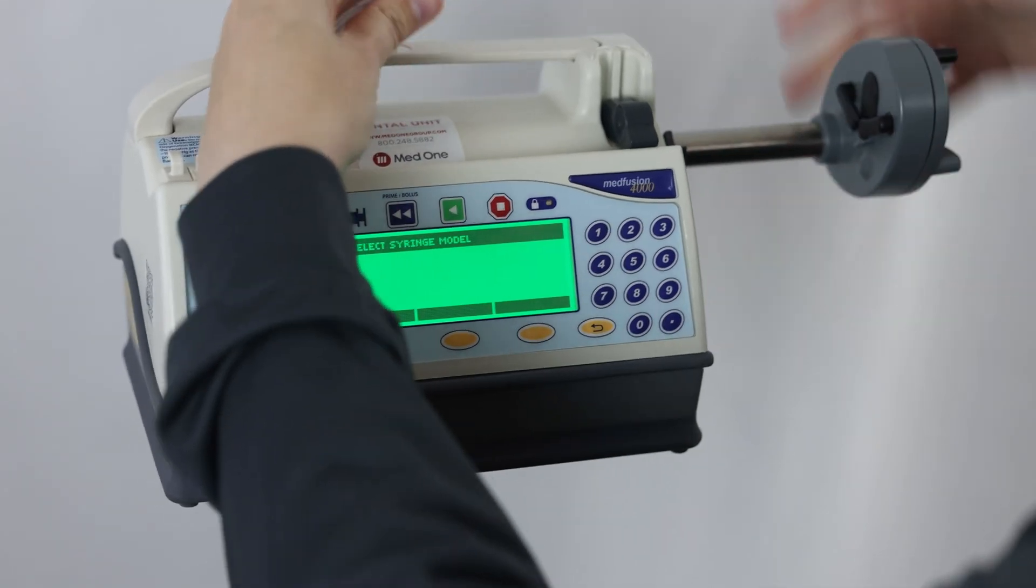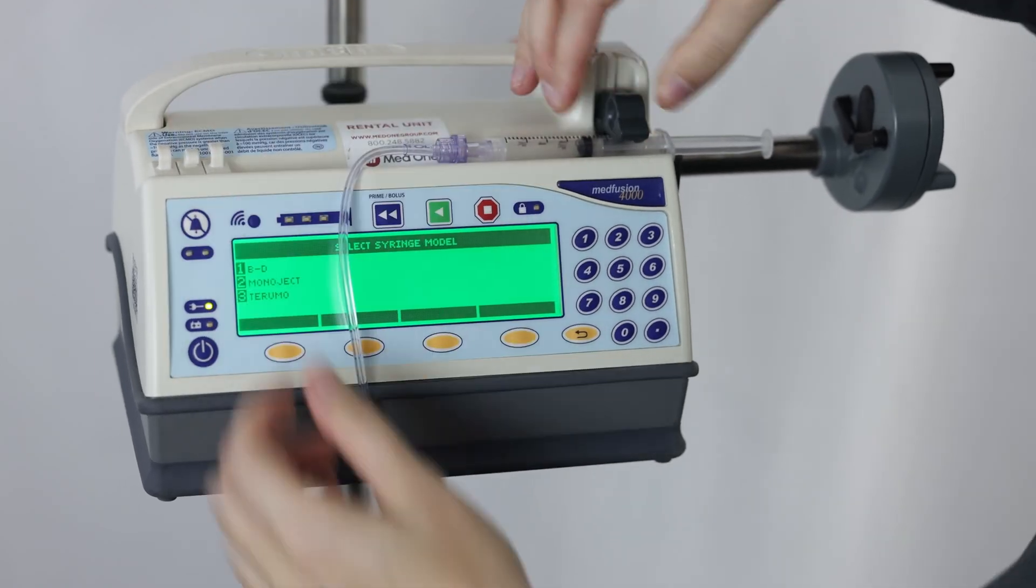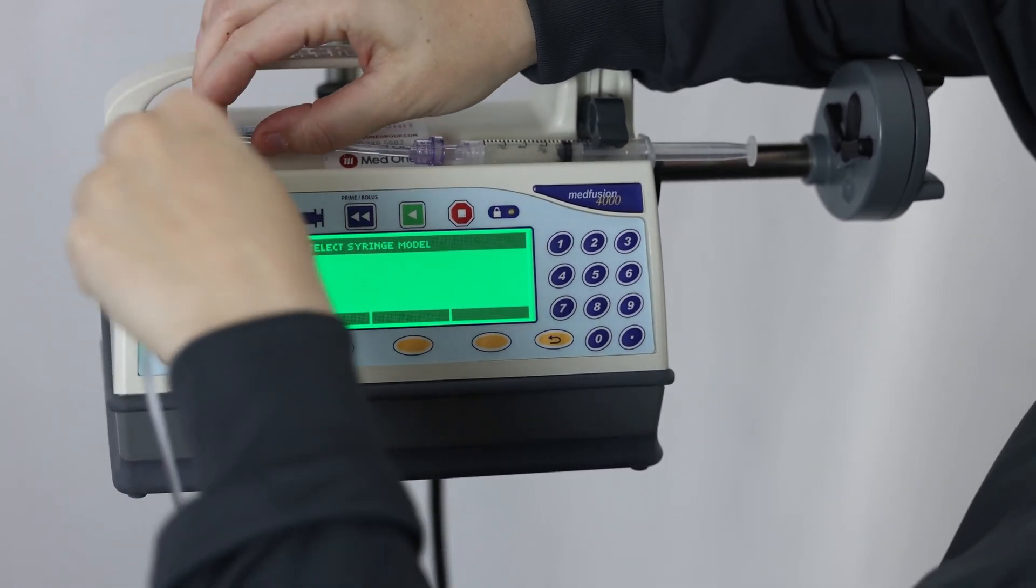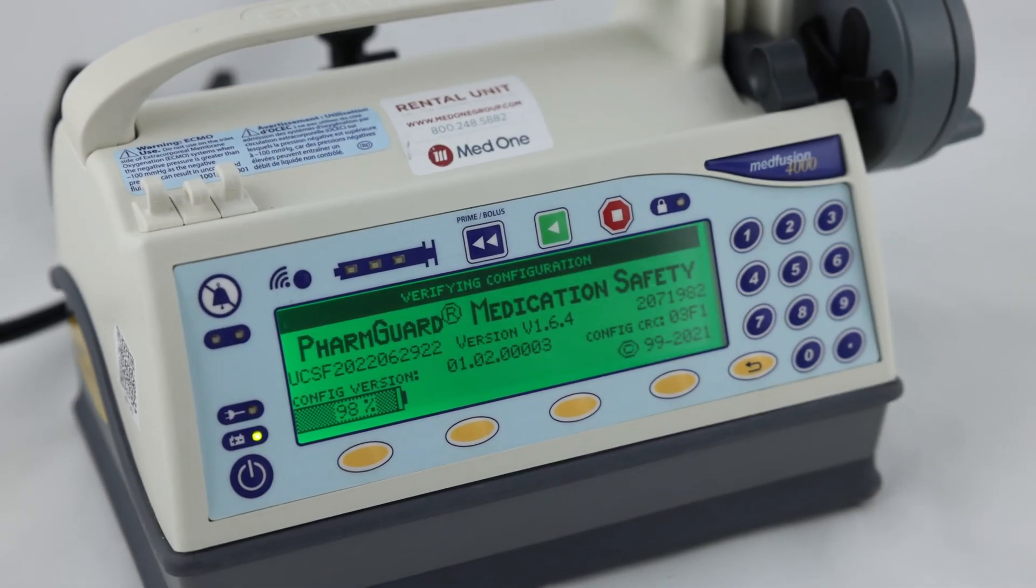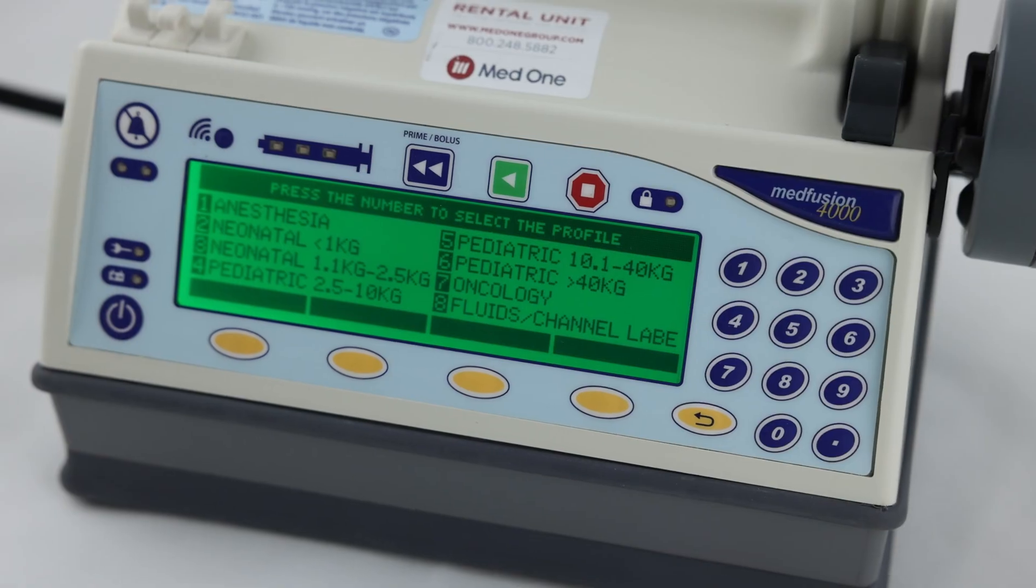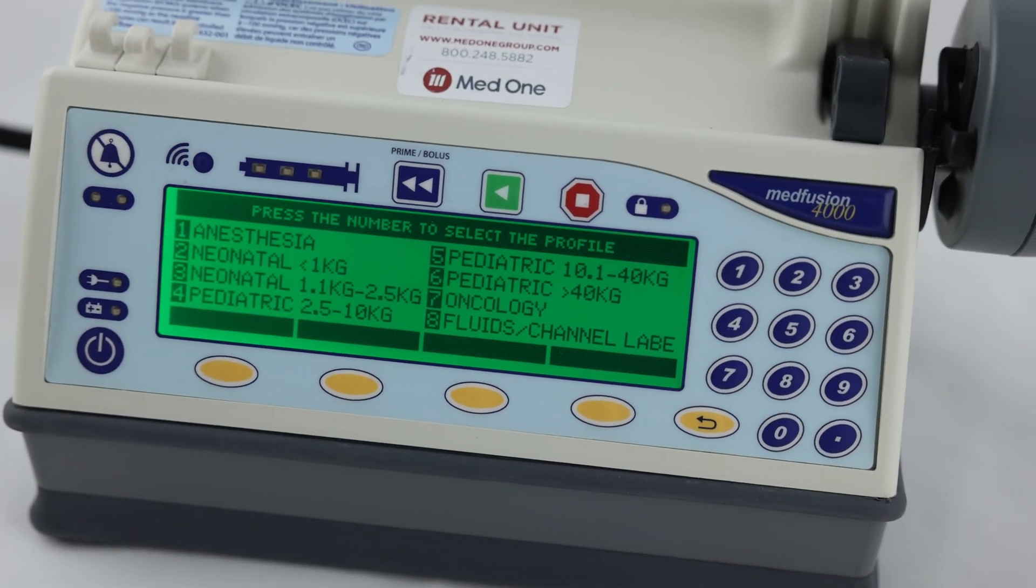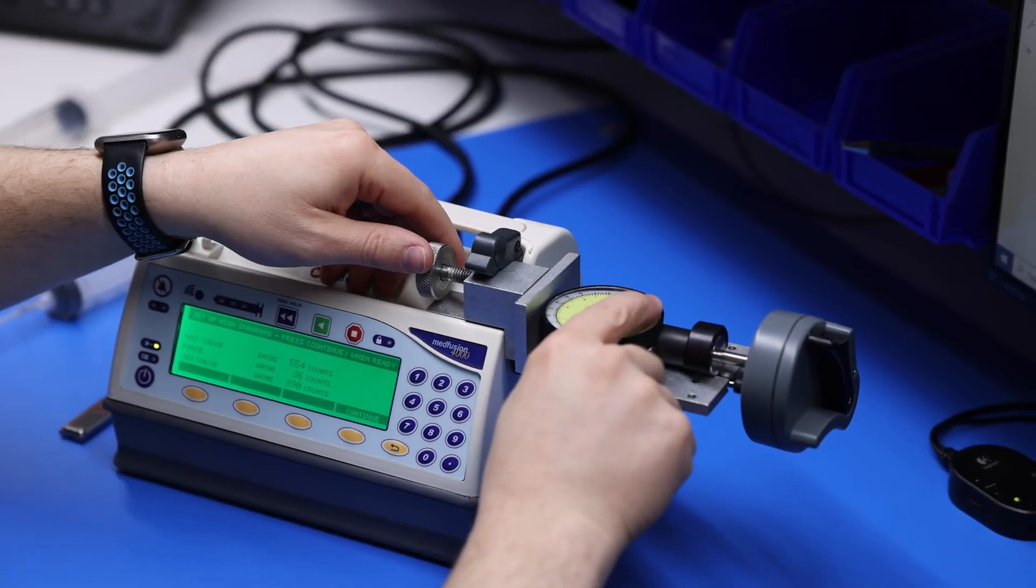Intended for use in the delivery of precisely controlled infusions, including blood, blood products, drugs, antibiotics, enteral nutrition, and other therapeutic fluids. PharmGuard medication safety software allows for programming dosing limits to assist facilities in promoting best practices and avoiding infusion errors. FlowSentry monitor provides pressure sensing technology for earlier clinical intervention.